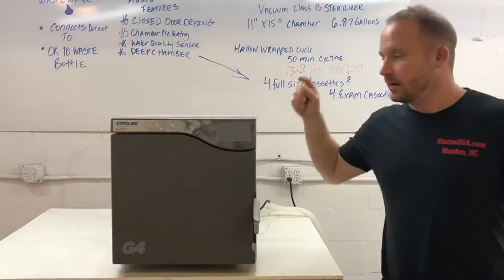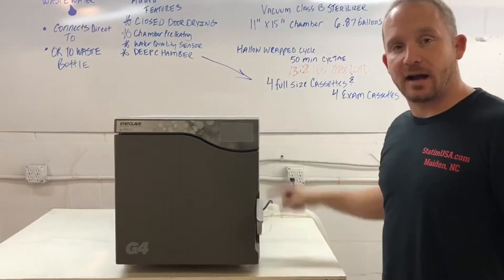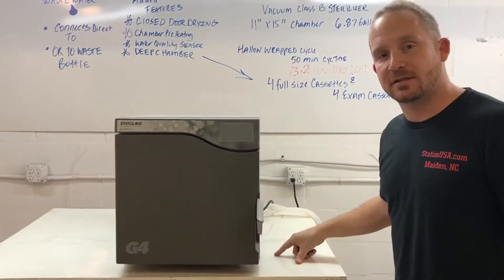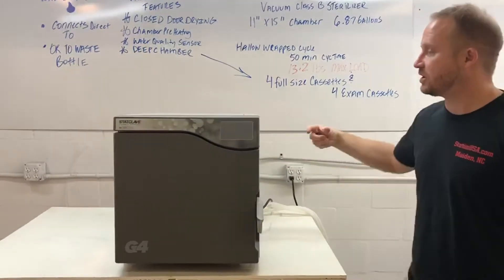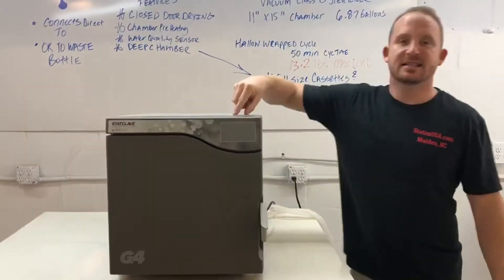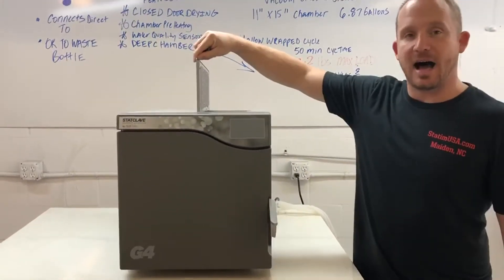Then make sure you can put this thing on a surface that can support 175 pounds. It has to have 2 inches all the way around the side and 7 inches on the top.